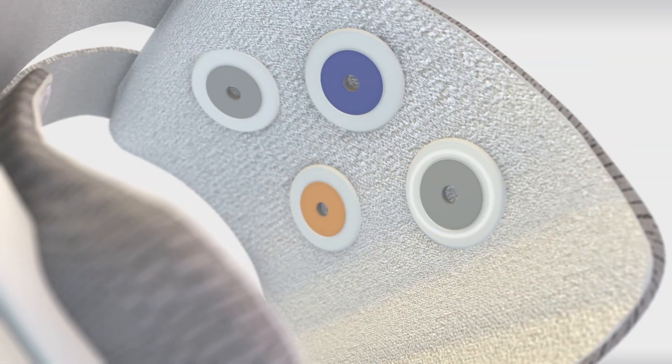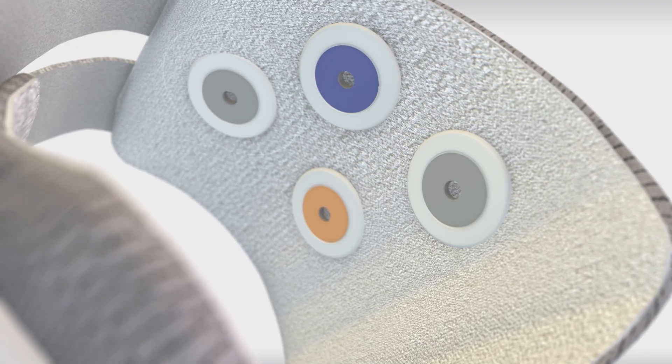Multi-channel stimulation allows for separate adjustments for medial and lateral intensity, providing precise control over inversion eversion.